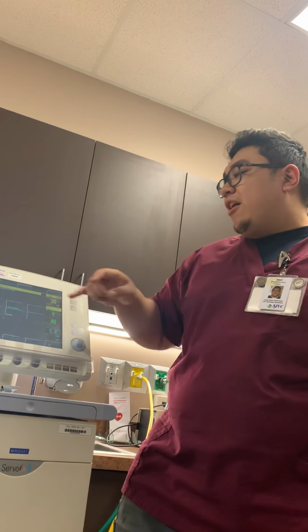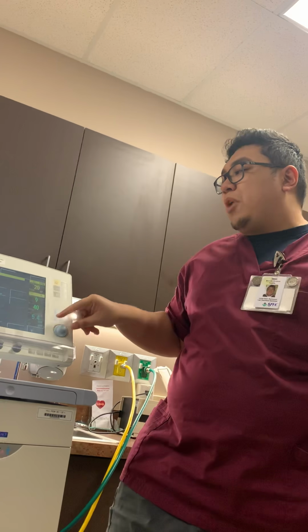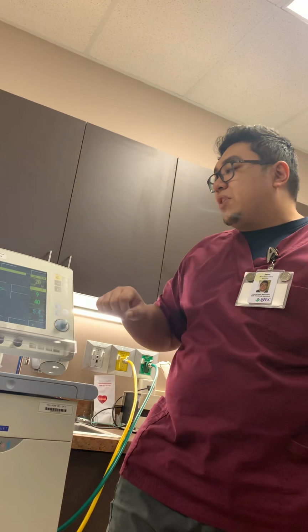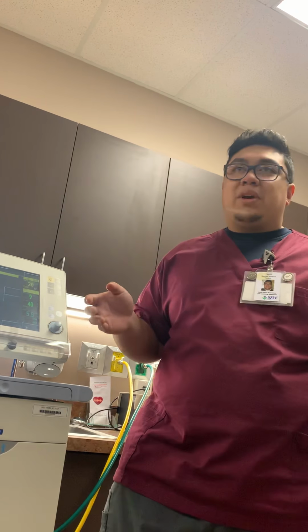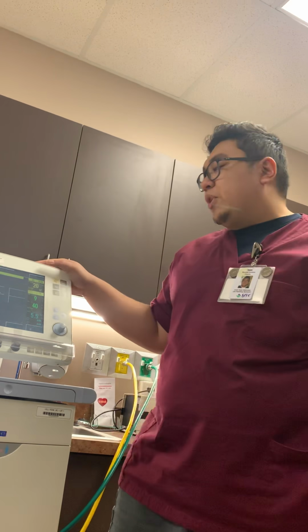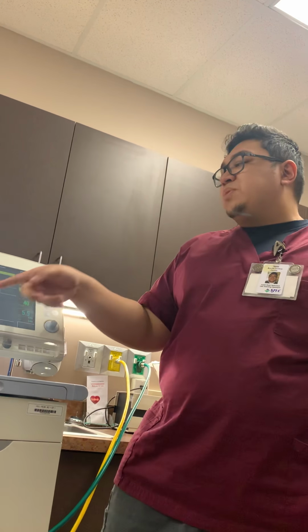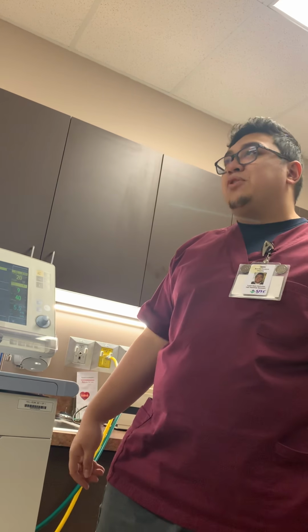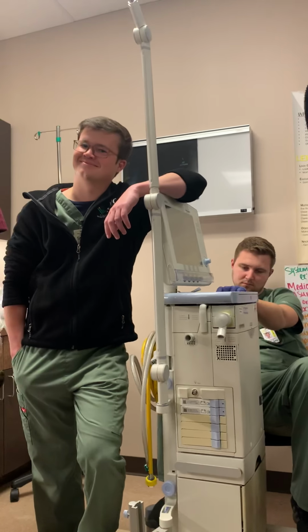All right. O2, obviously, they're probably going to be at least 60. If you're using this advanced ventilator strategy, they might be at more, they might be at 100. Depends on what your patient's coming from. T inspiratory rise, also known as ramp, also known as T inspiratory rise. That was a trick question. That's mostly for patient comfort. So that's how quickly they're going to get their breaths.